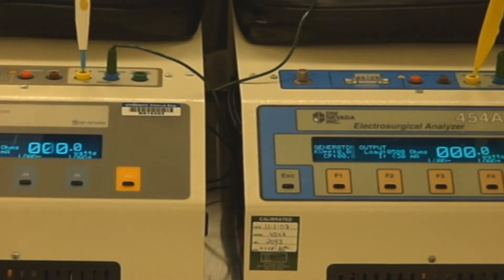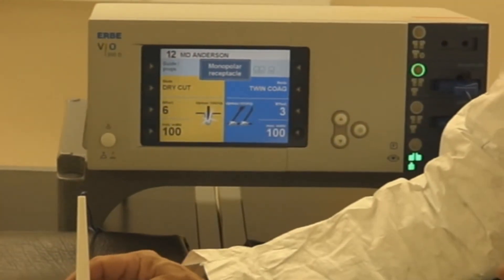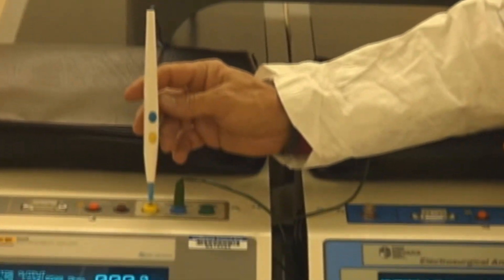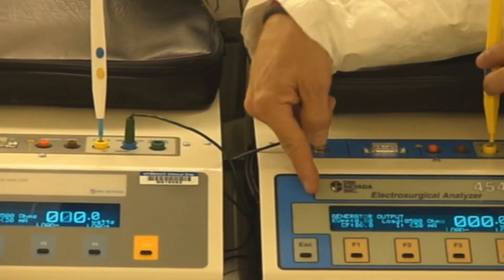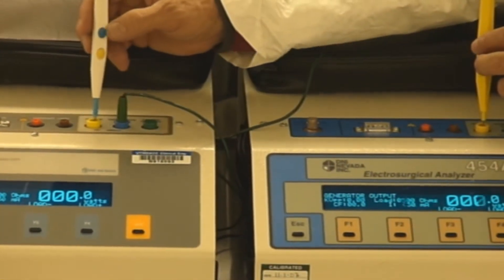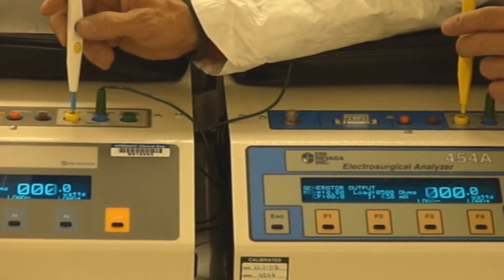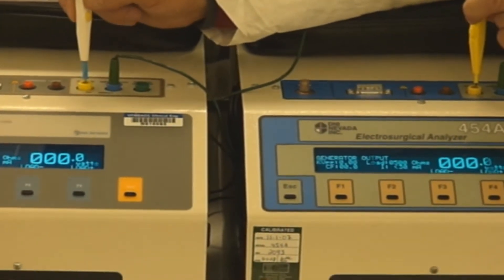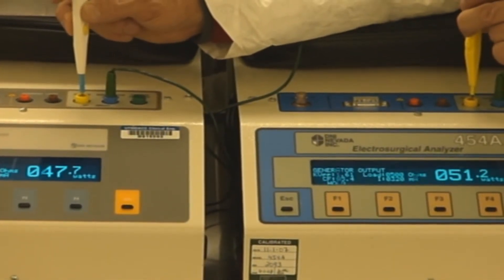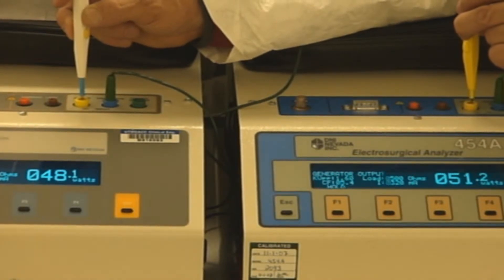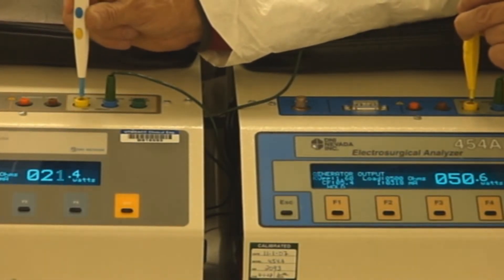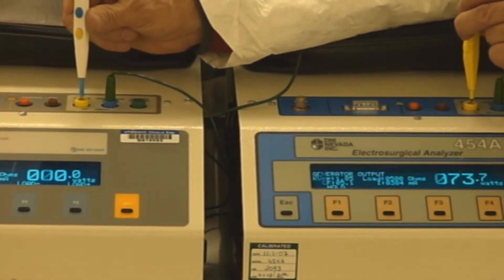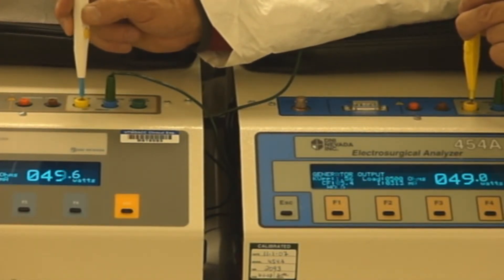We're going to try effect three now. And if you're noticing as you go along here, the actual power delivered in the ESU analyzers, you'll notice that it doesn't really appear to be changing very much, no matter what effect we're on. For this particular test anyway, there's the shift. Surgeon one comes back in, split. Surgeon two drops out, there's the shift.